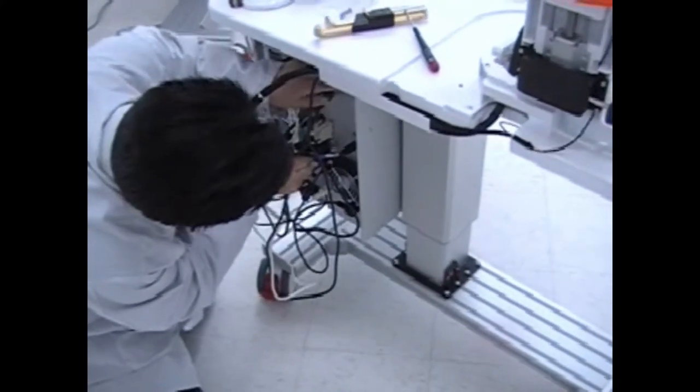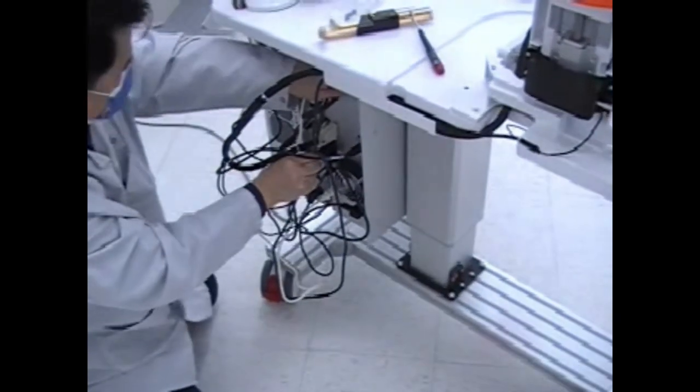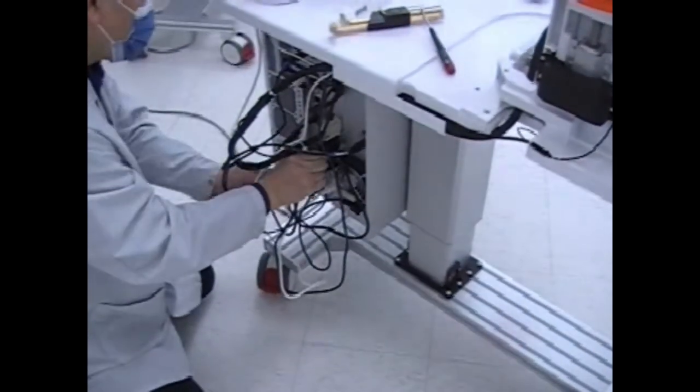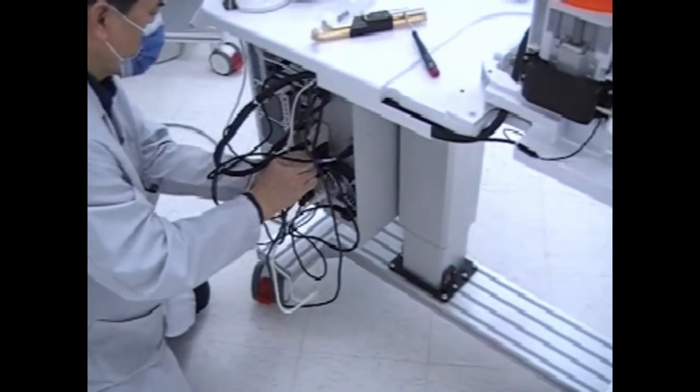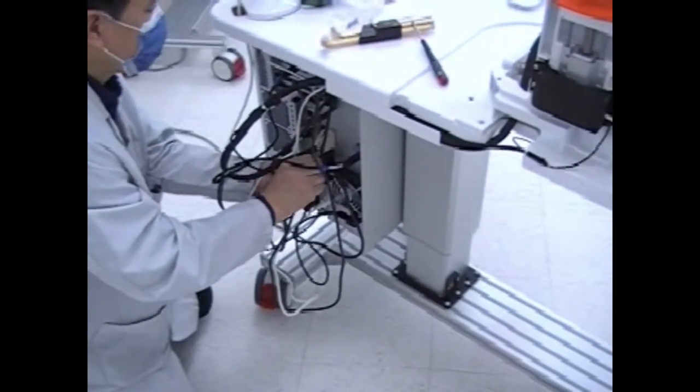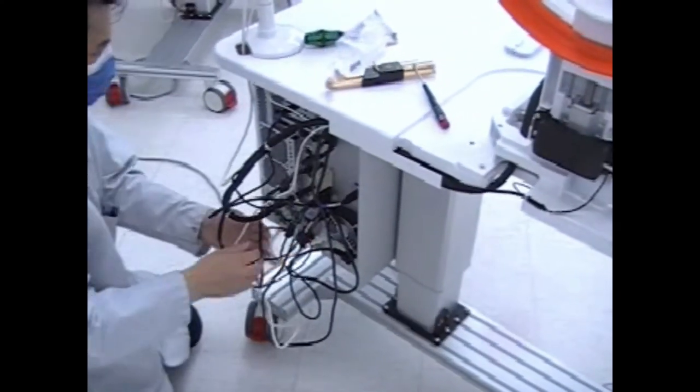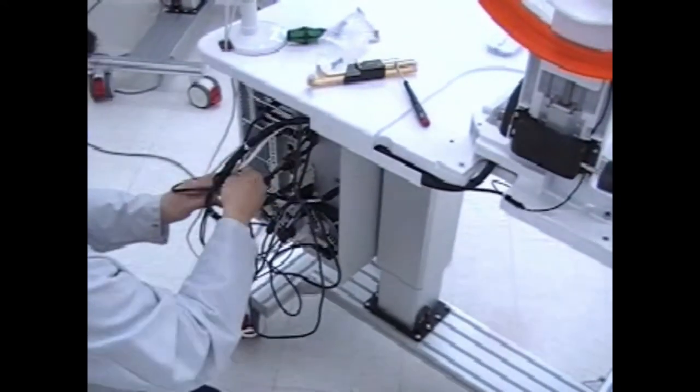After connecting all the cables and making sure the joystick moves freely, neatly bundle the cables, ensuring there is no strain on the connections and that the cable bundles do not fall on any of the computer cards, which might cause a disconnection.